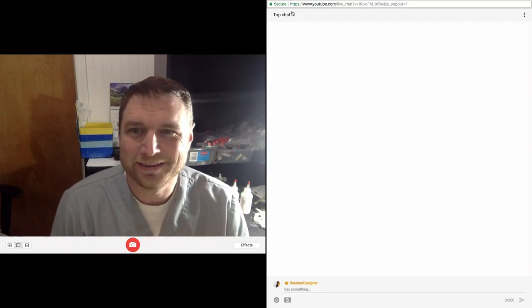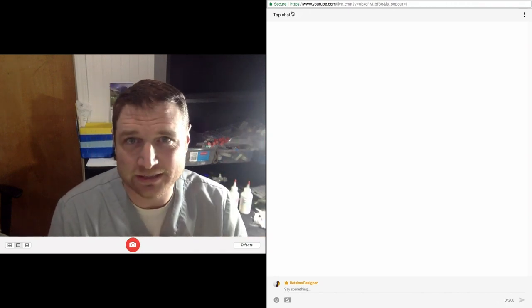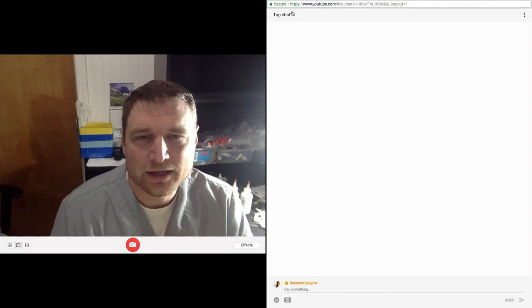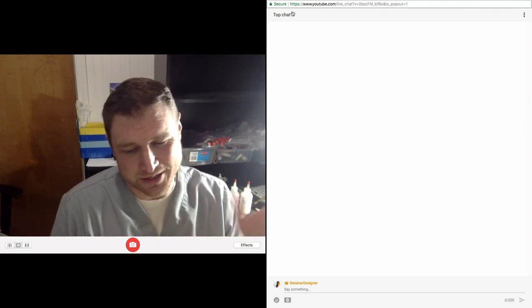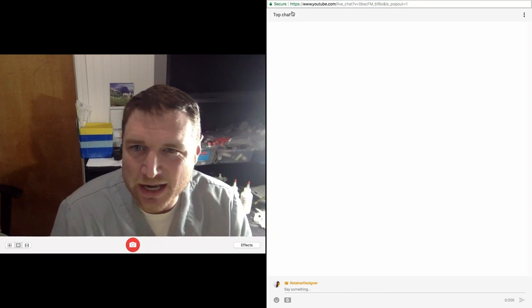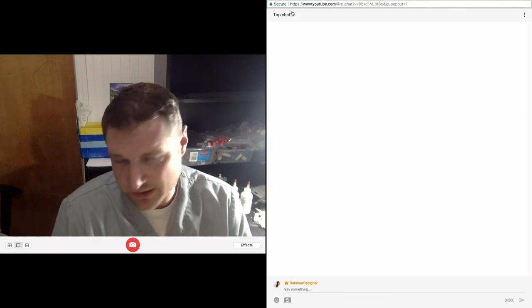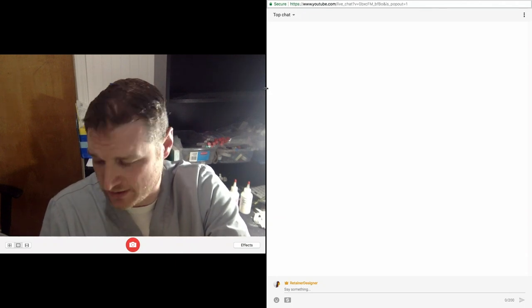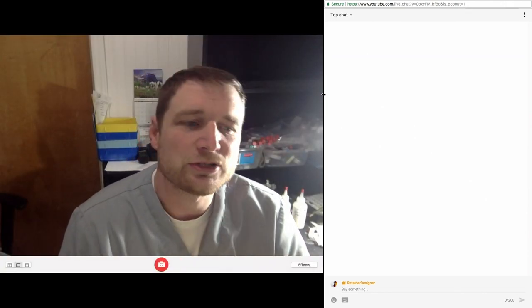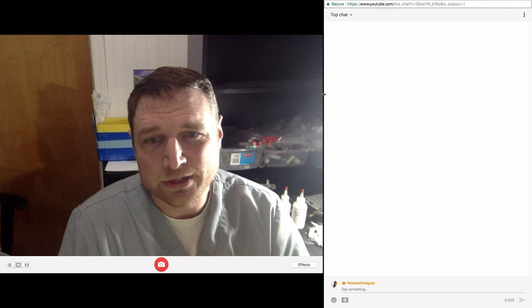Alright, I think we're live. Welcome to Wire Wednesday number nine. Sorry about the lighting — it's set up for doing acrylic today, so that's what we're going to do. I got different camera angles and about six appliances I'm going to sprinkle. I'll walk through it as I sprinkle and I have the chat open, so be sure to ask questions. Let me know where you're watching from and any questions you have regarding acrylic.